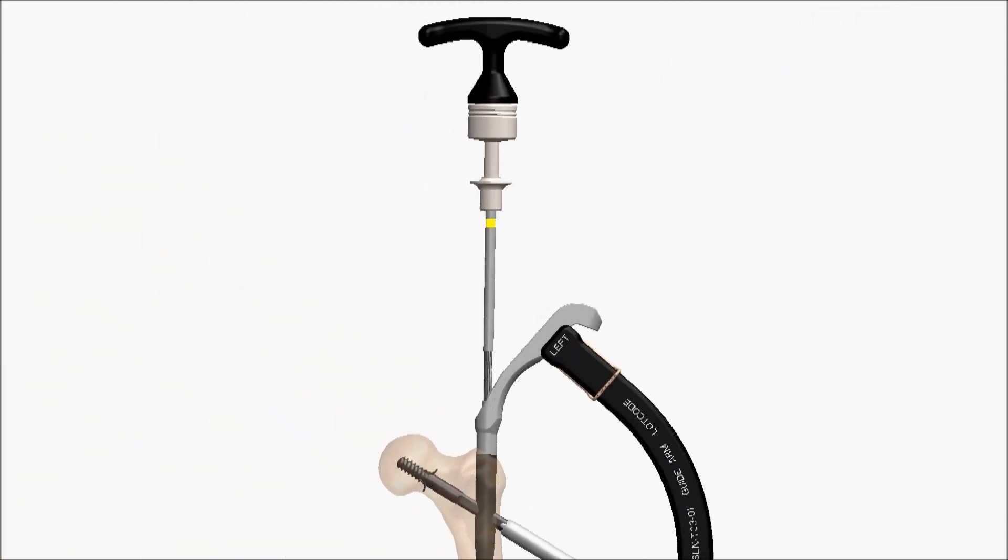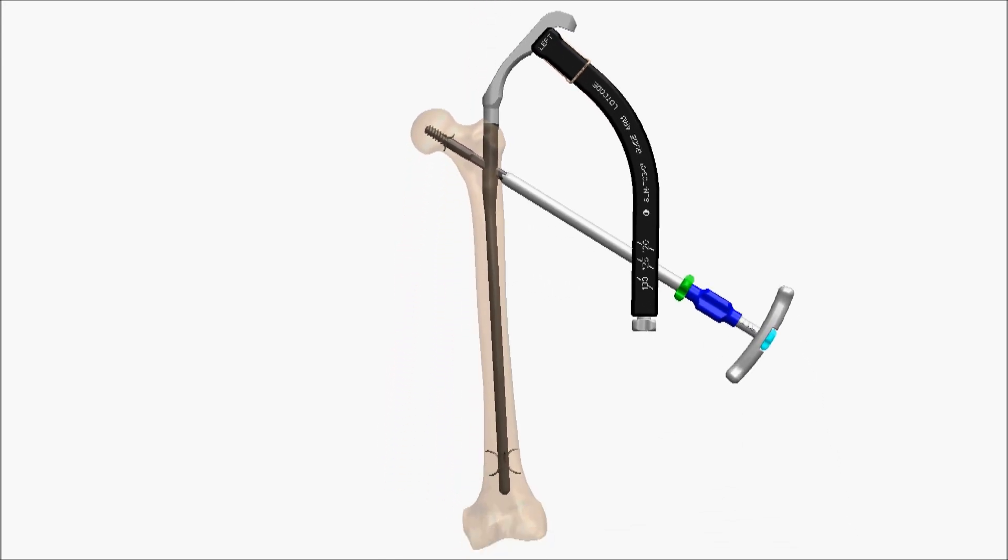After compression has been applied, re-engage the set screw for either a fixed or sliding configuration. See the technique guide for more details.